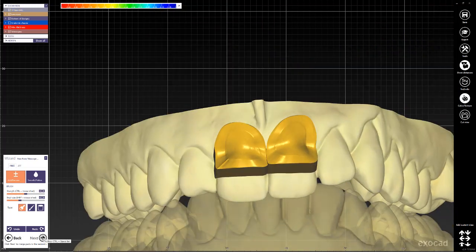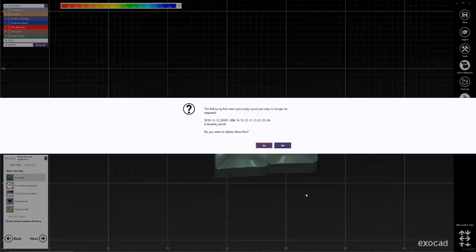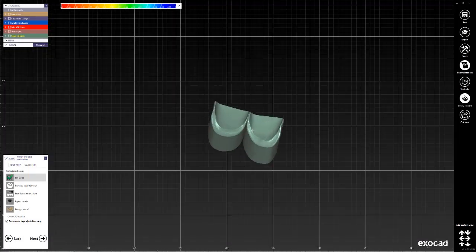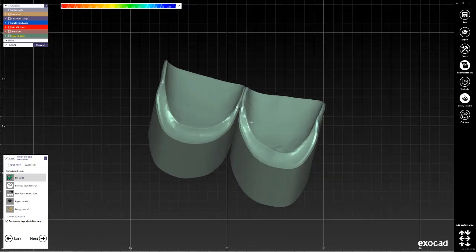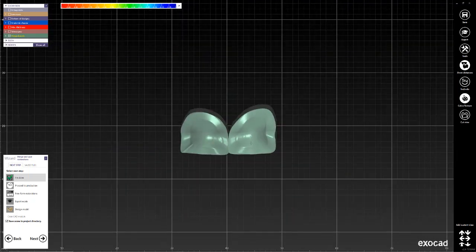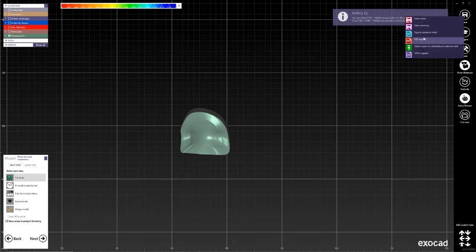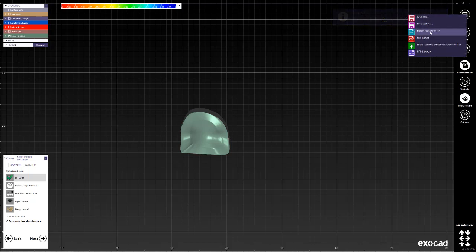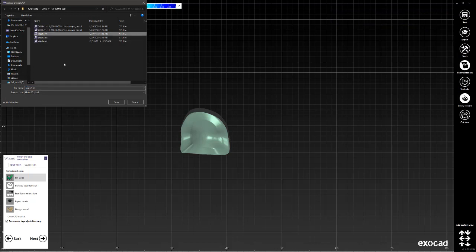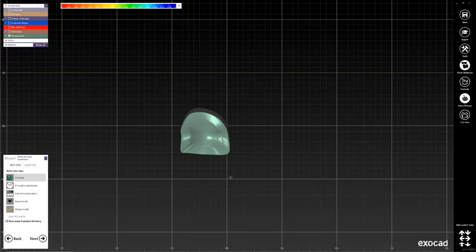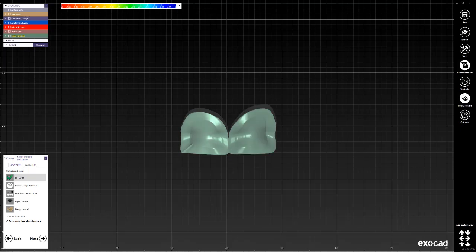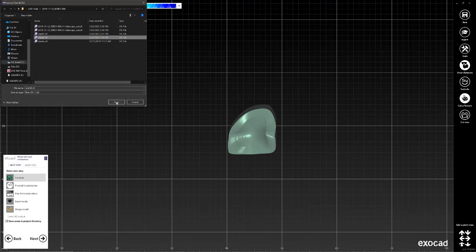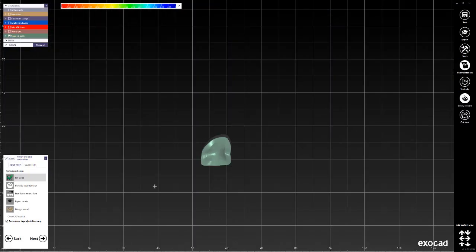And then to the very last step. The last thing we want to do is save each one of these structures separately. So we'll go ahead and visualize one of them and right-click on the save button, export scene to mesh, and then we can select the name for it. So I already saved some attachments named the same way, so we're just going to overwrite those. Now we have all that.